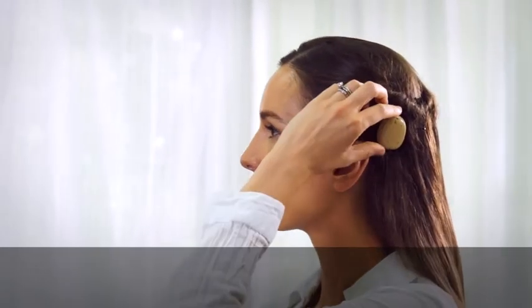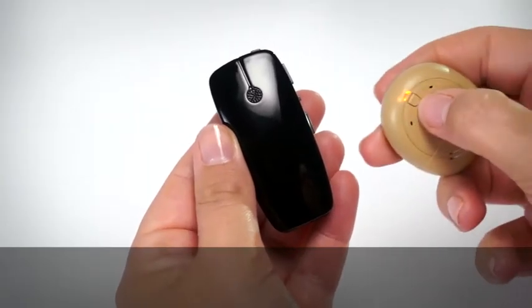To pair the Mini Microphone 2 Plus, first remove your sound processor from your head. Turn off your sound processor.